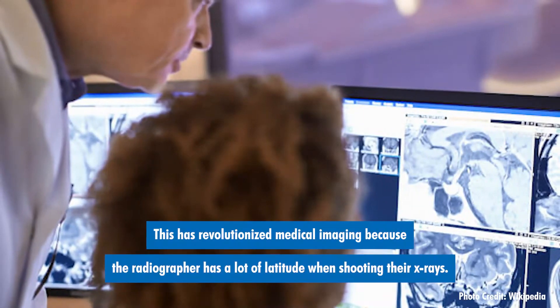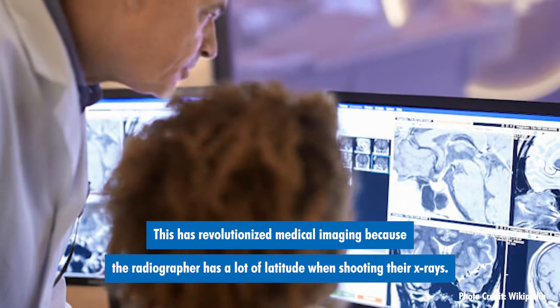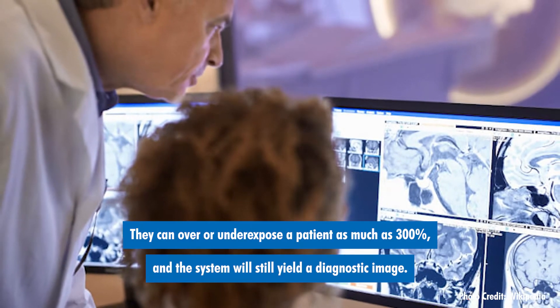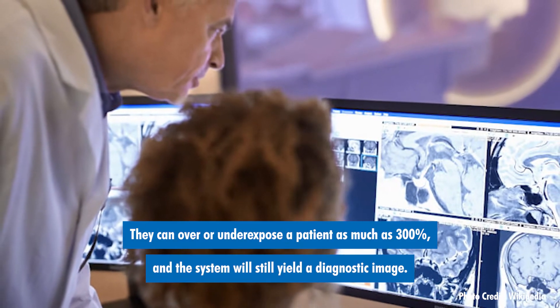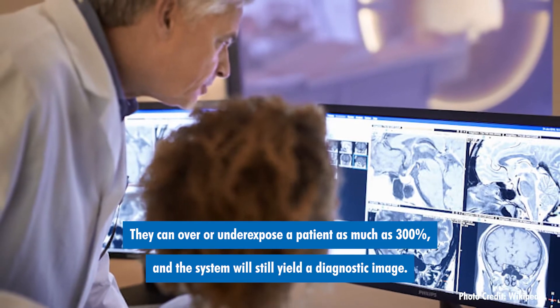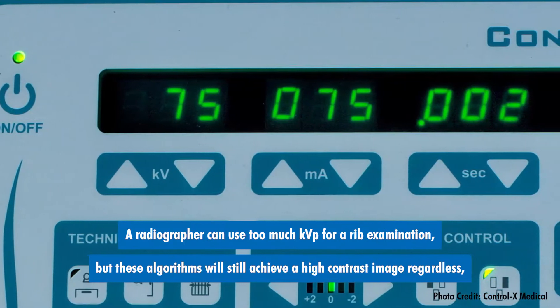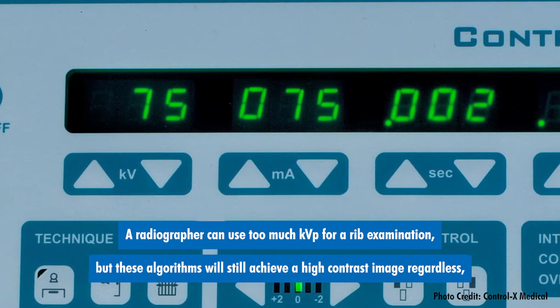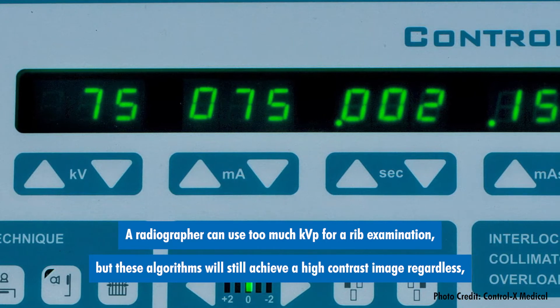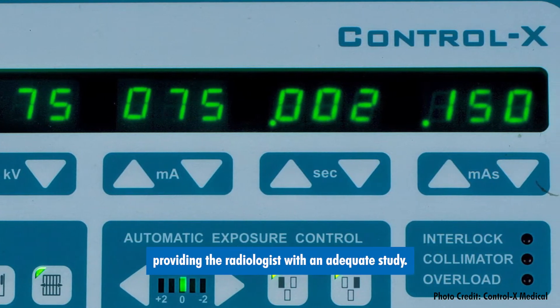This has revolutionized medical imaging because the radiographer has a lot of latitude when shooting their x-rays. They can over or underexpose a patient as much as 300% and the system will still yield a diagnostic image. A radiographer can use too much KVP for a rib examination, but these algorithms will still achieve a high contrast image regardless, providing the radiologist with an adequate study.